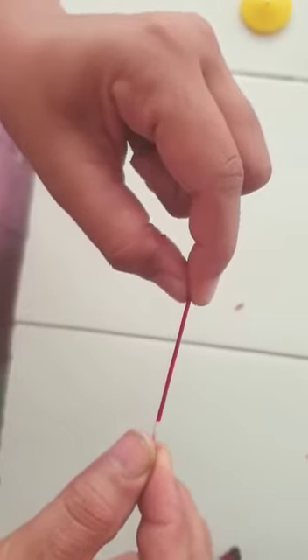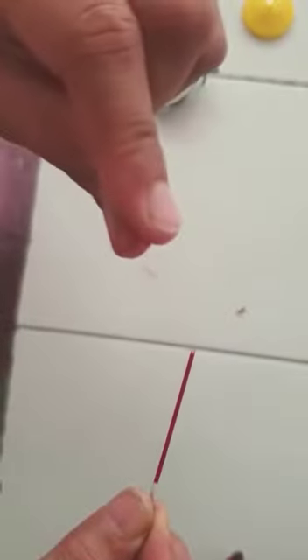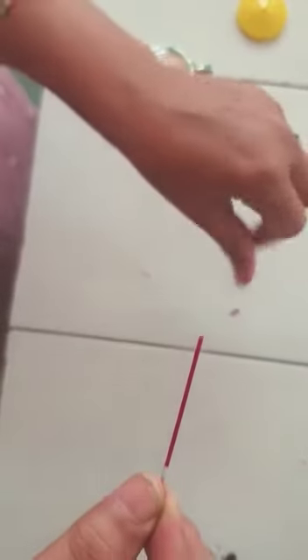After another 30 seconds, break again to see any fibrin thread-like structure. There is no appearance.